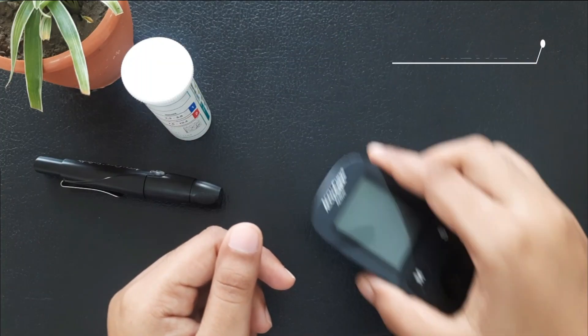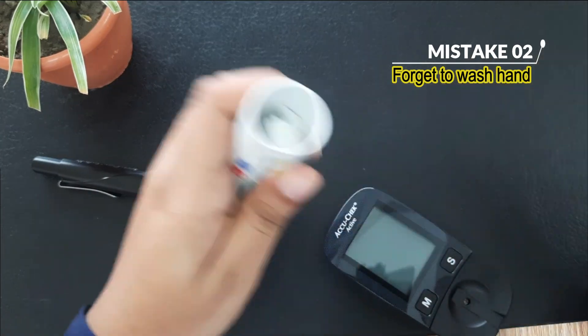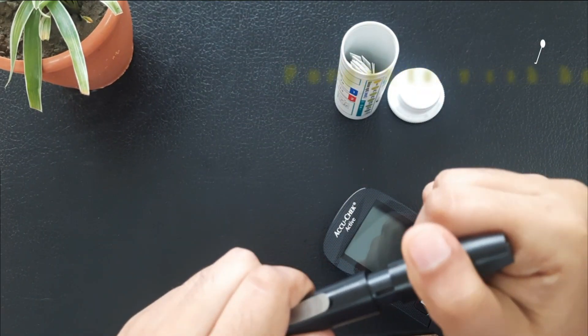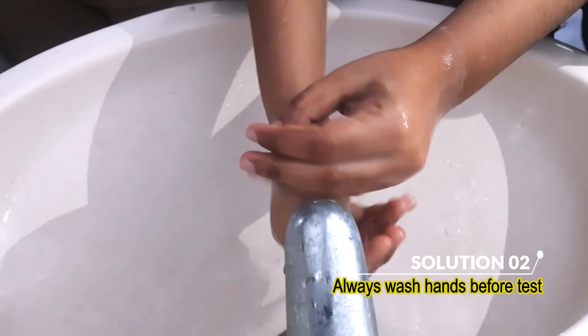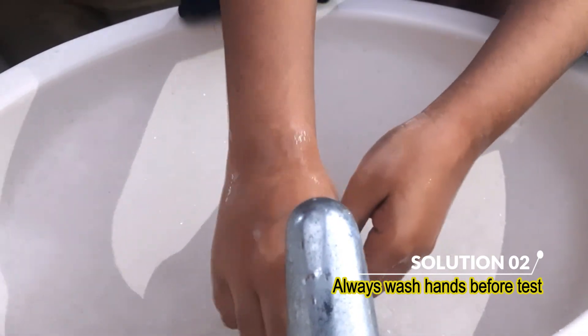Mistake 2: Skipping hand washing. Solution is, always wash your hands with soap and water before testing. Any residue on your fingers can affect the reading.